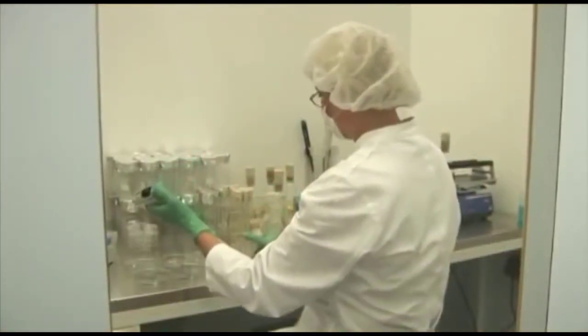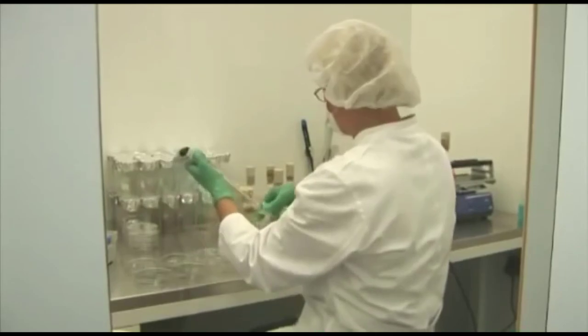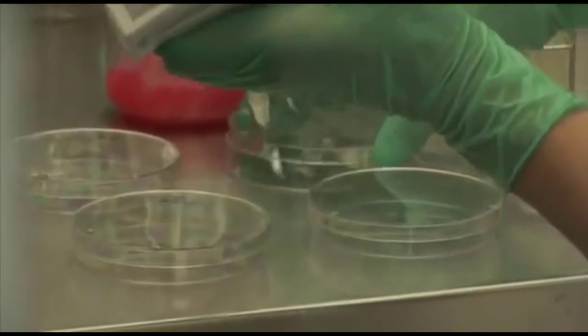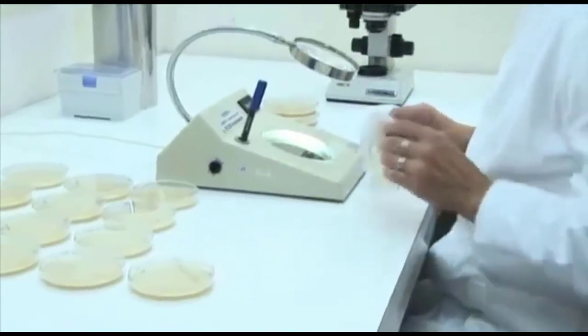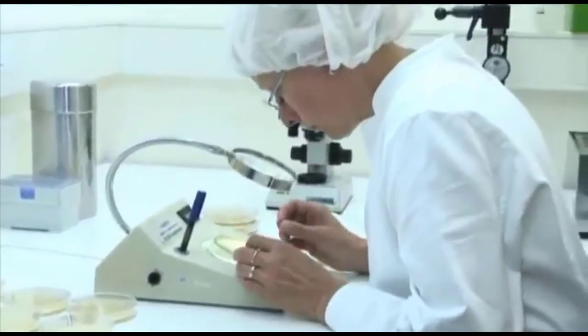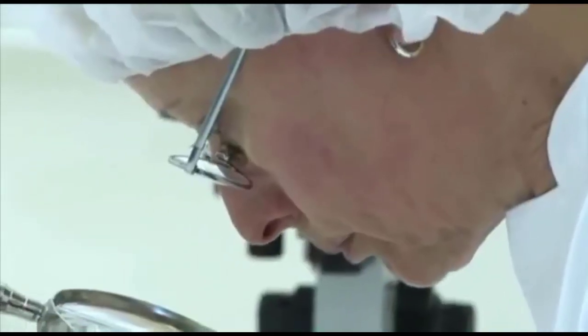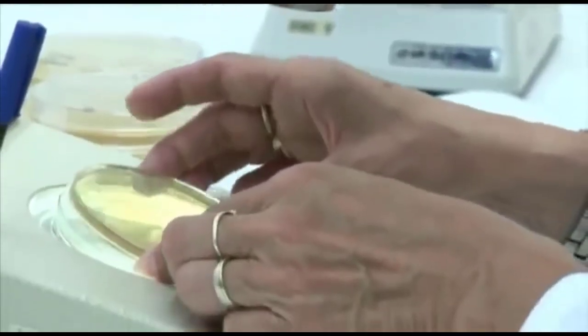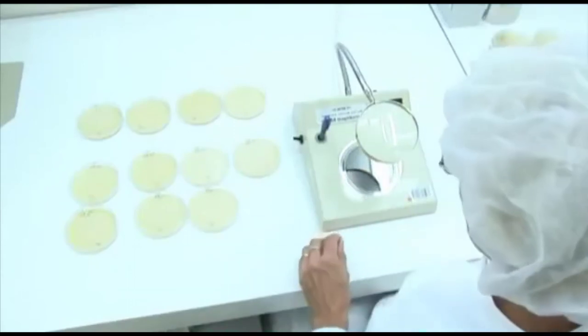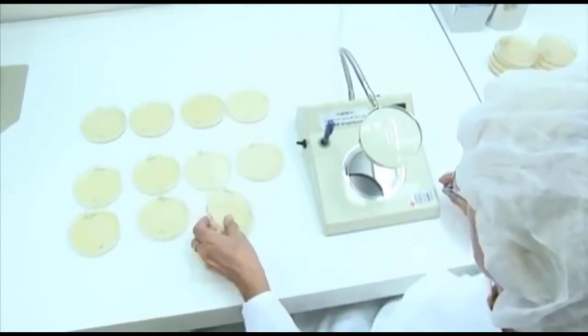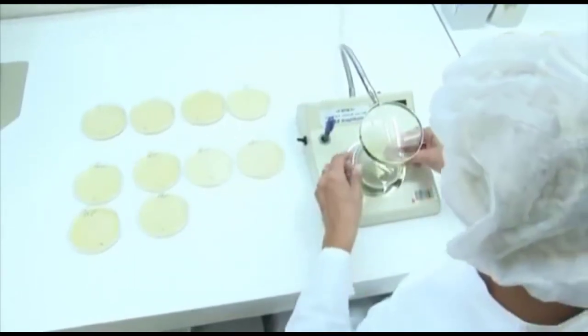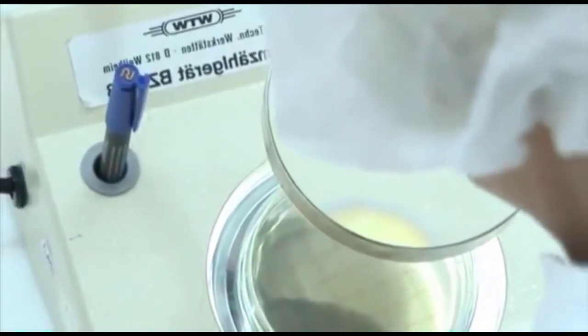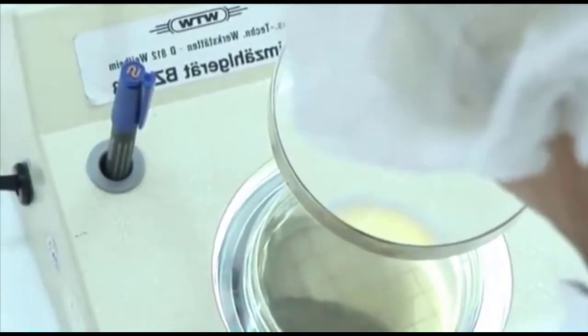As the use of condoms is not just a matter of trust and safety, but also affects hygiene, the condom batches are subjected to another voluntary examination, which ensures that they are microbiologically clean. Under sterile conditions, the condoms are cut and immersed into a sterile solution. This solution is then vacuum filtered and subsequently checked for any germs that might have been passed on. This extra check is documented by the DLF quality seal printed on each single condom pack.